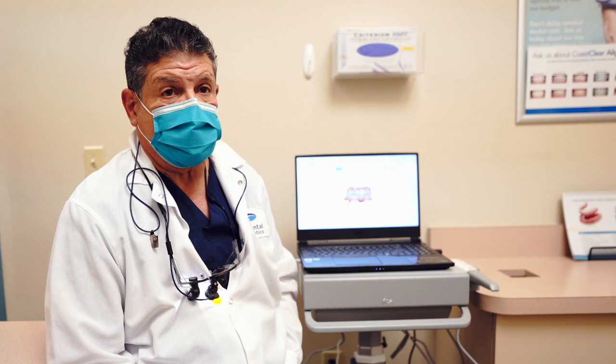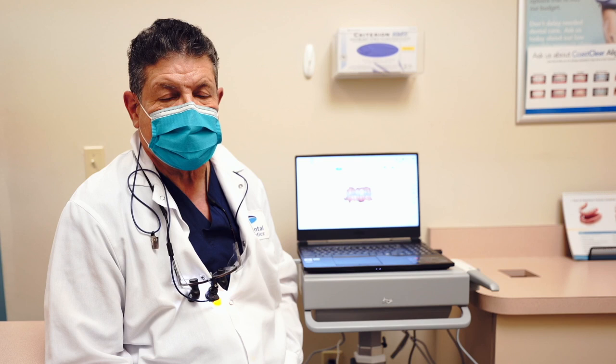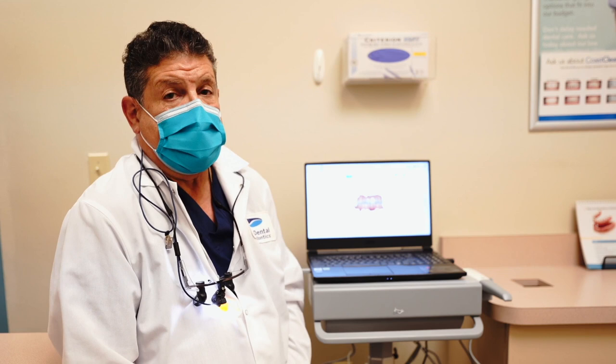At the end of the day, I think it has been an absolute improvement in the way we provide dental care to our patients. One concern that dentists have is that it takes more time than taking an impression. I am fortunate to have two fabulous dental assistants who can scan for me, and then I go in and refine the scans. It takes less time than taking an impression.